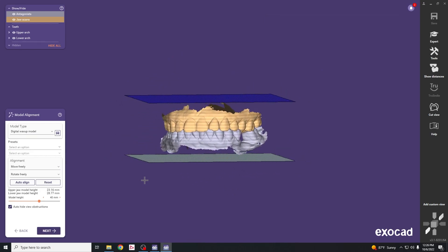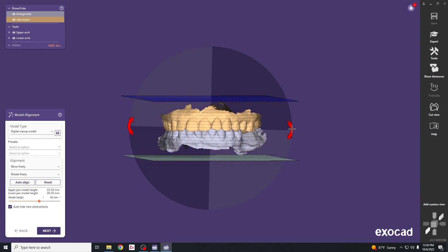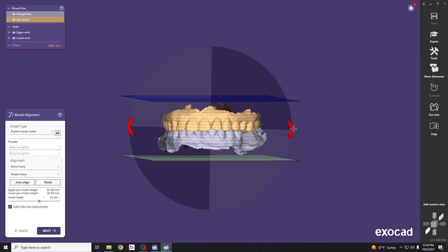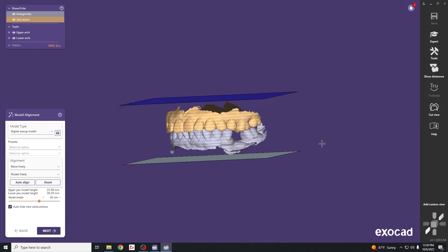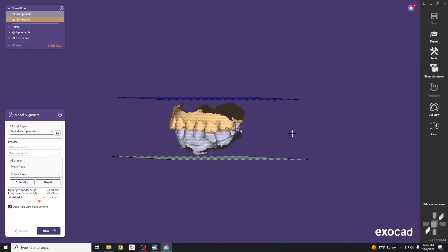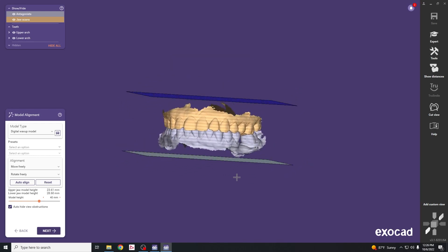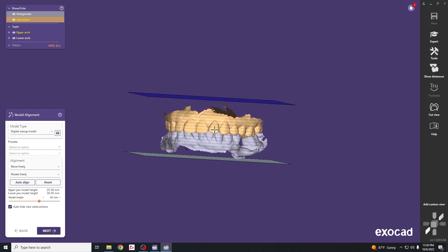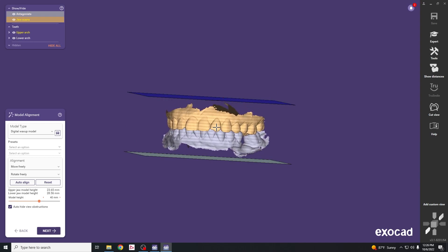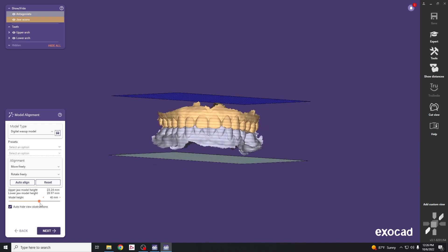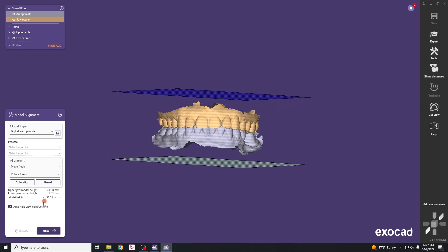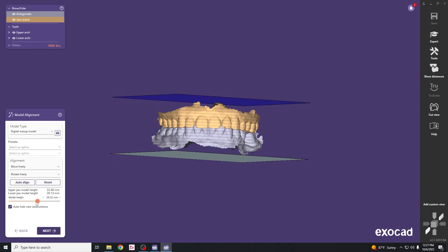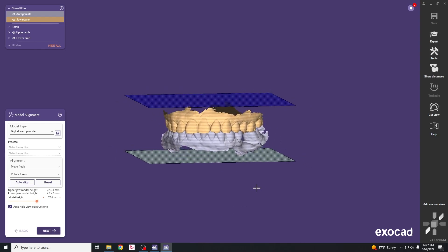Center the model within those two planes. If you hold down control it allows us to change the angulation and orient it parallel to those planes. You can see little lines that help visualize whether it's parallel or not. Look from the frontal plane and sagittal plane to get it lined up. If you just click on the scans you can move them vertically. If the scans are too tall, toggle the slider bar to get the height you need. Once that's set, hit next.